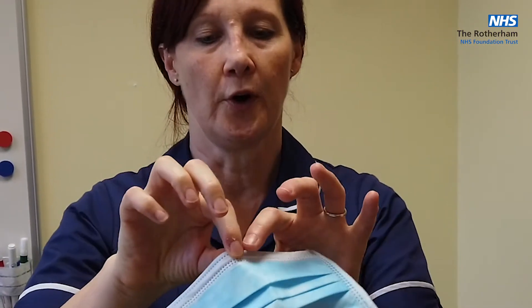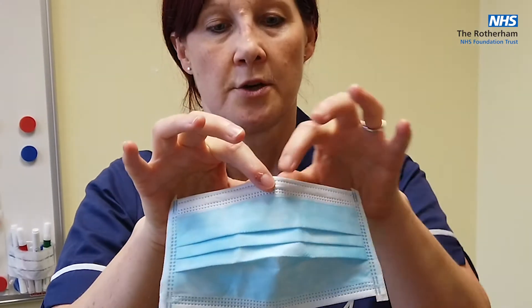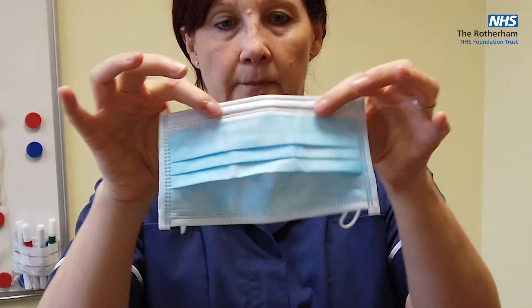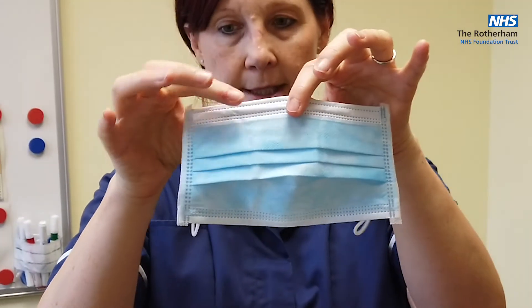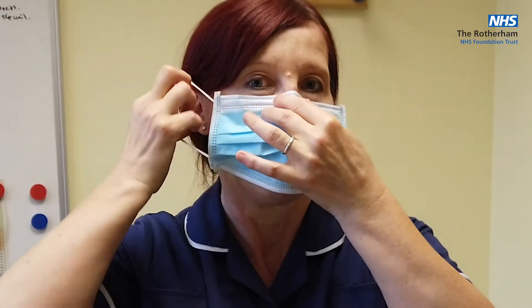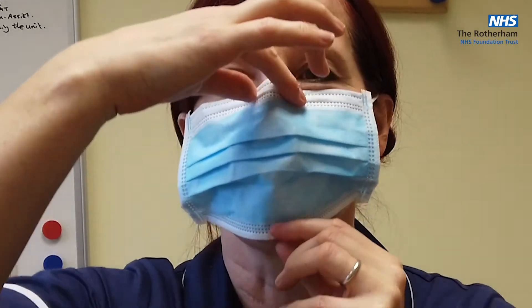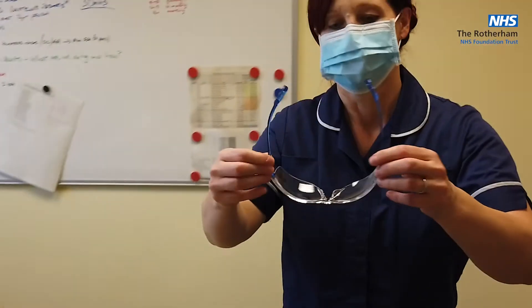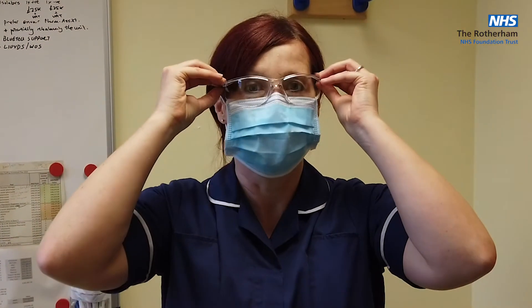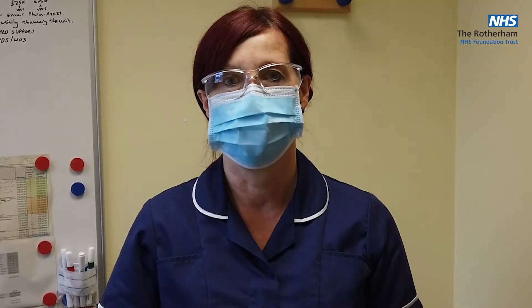You'll find different types from different suppliers coming into the hospital at the moment. You'll feel that there is a little part — either plastic or steel — that sits as the nose protector. Pop that on, loop it over each of your ears, and then make sure you are covering nose and mouth. With our sessional eye protection, we've now got cover of our nose and mouth, and the eye protection should sit over our mask.